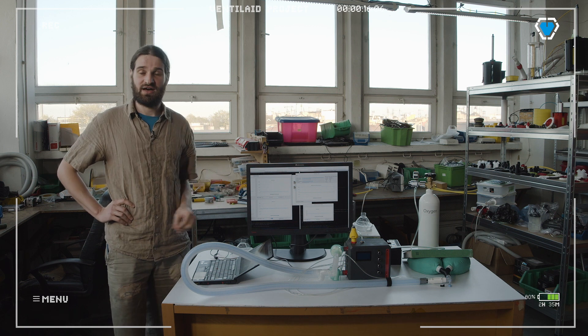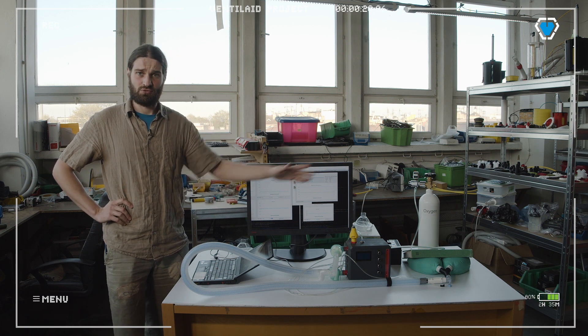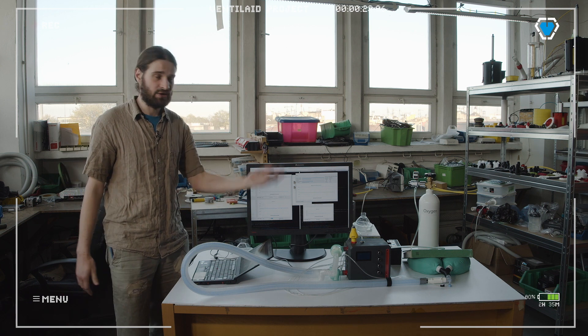This is the fairly final version of how we want to put it together, and I'll run you through all the components and more or less how it works.